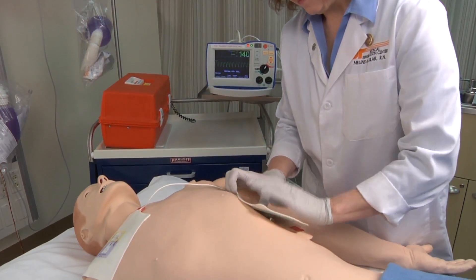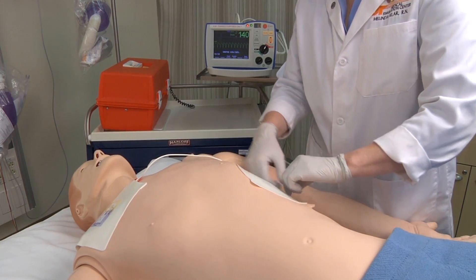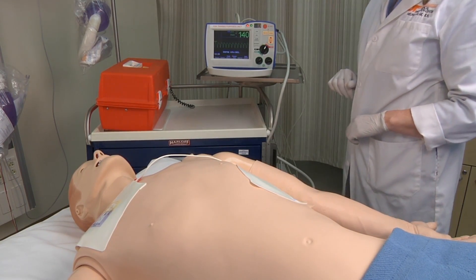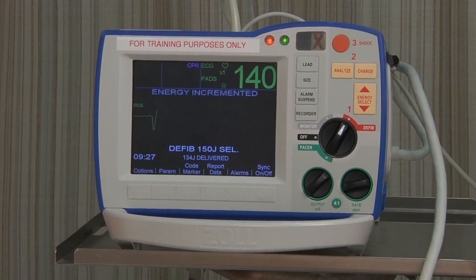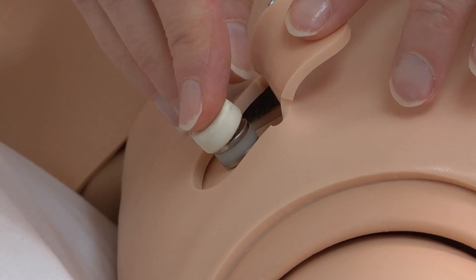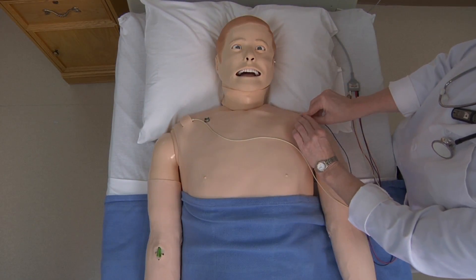SimMan 3G's heart is capable of accepting defibrillation and can automatically change ECG rhythms in response. The simulator includes an extensive ECG library which allows the instructor to display different 3-lead and 12-lead rhythms.